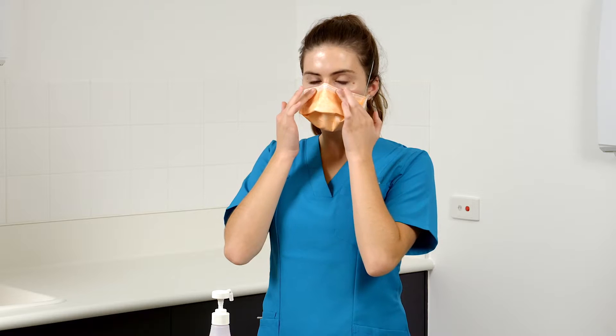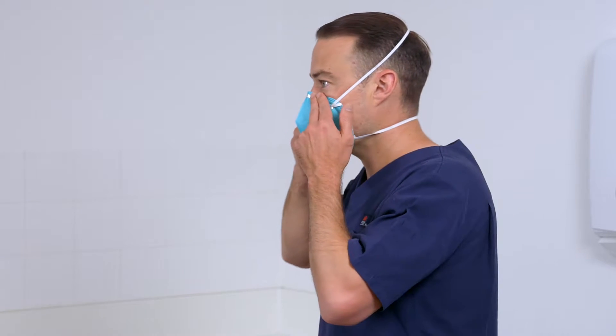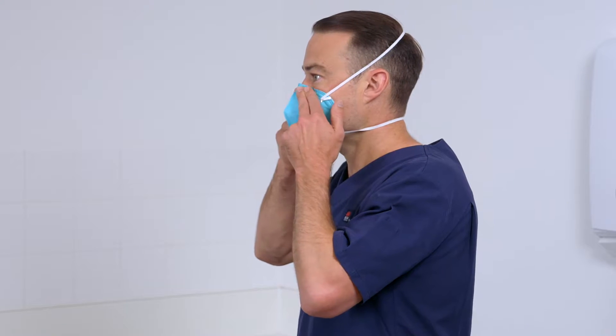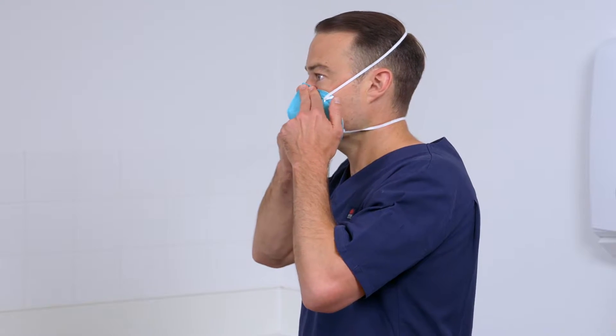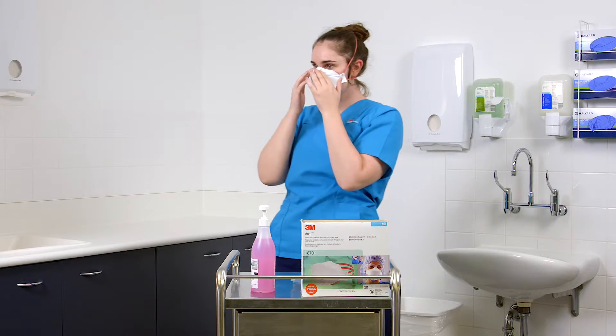Respiratory protective equipment should cover at least the nose and mouth, and is used to reduce the health worker's risk of inhaling hazardous airborne particles, including infectious agents.